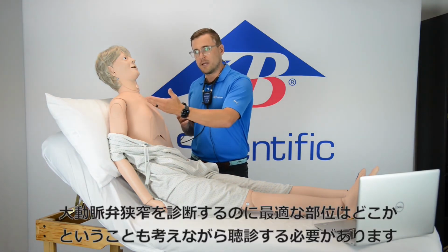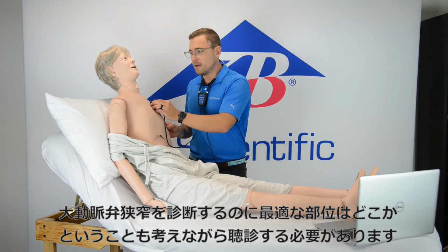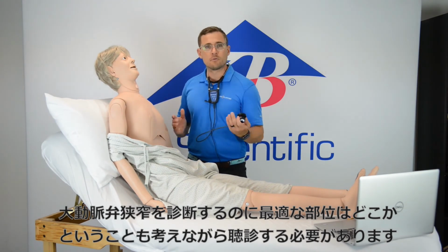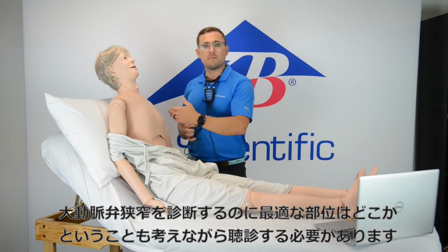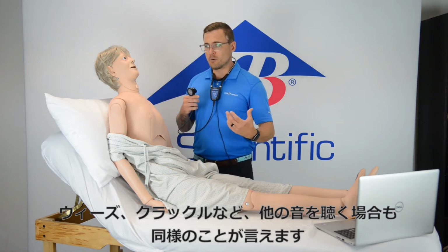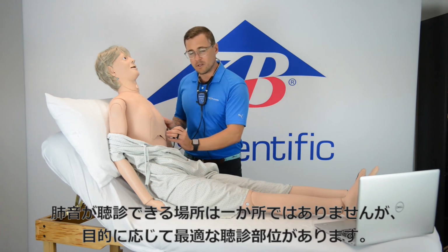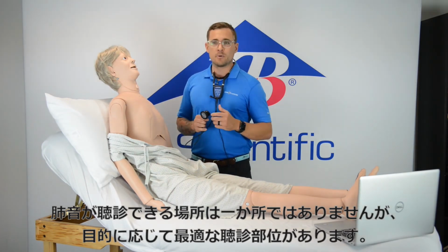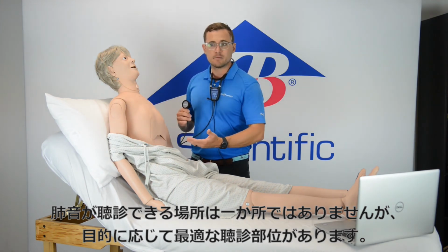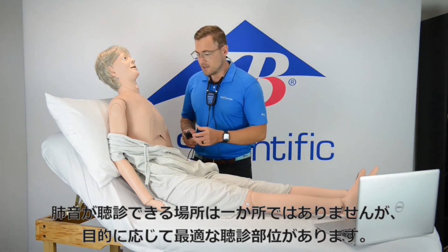Of course you'll hear it in the most appropriately auscultated area, but that sound will be brought throughout the various aspects of the heart. The same thing with wheezing or crackles or rales. When we're auscultating the lung sites, you will be able to hear those sounds in various areas, but the best in the most anatomically appropriate site.